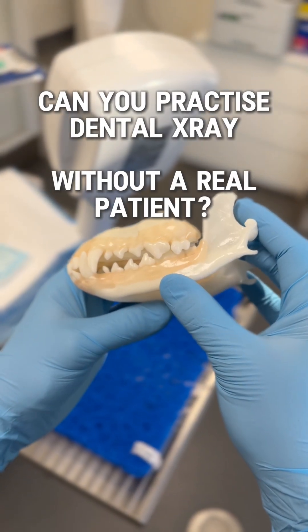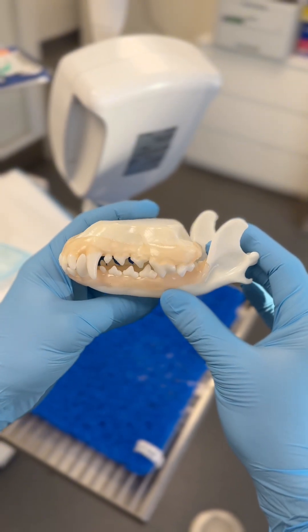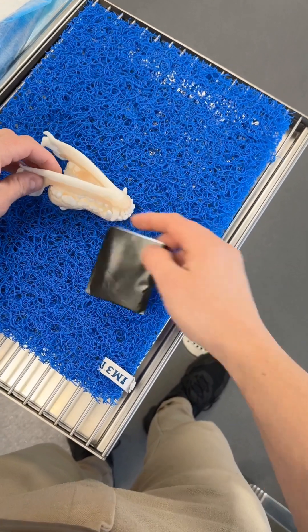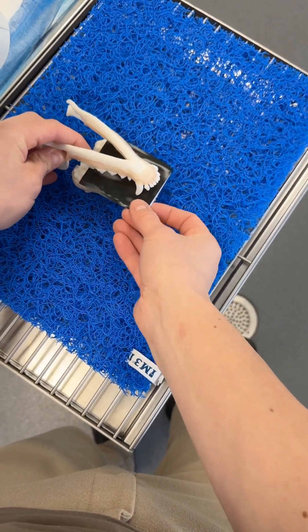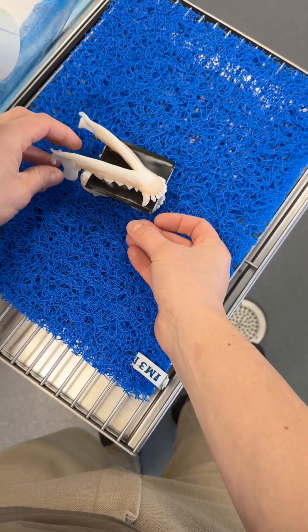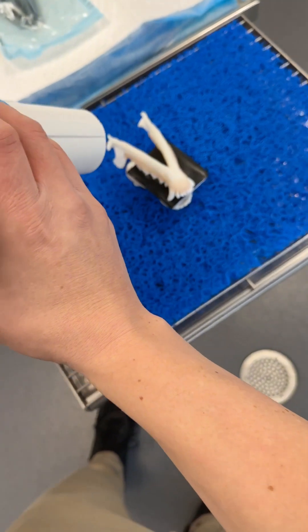Can you practice dental x-ray without using a real patient? Let's test it out. I recently received this model from Active Learning — thank you for that. It's always exciting to try things.